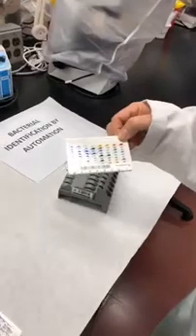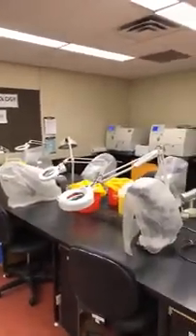These are some of the types of things we use to identify our bacteria. We can go from very basic tube media, which is all very manual — lots of different colours — the different media turn different colours depending on their reactions. Then we have the next step up with a card, which is basically a miniature of some of the tube tests. And then the automated one is the Vitek. This is our Vitek over here — that is the machine that reads the little cards, and we have three of those in this room.